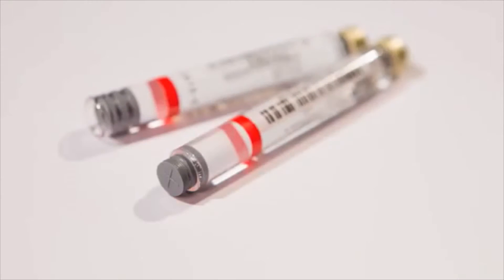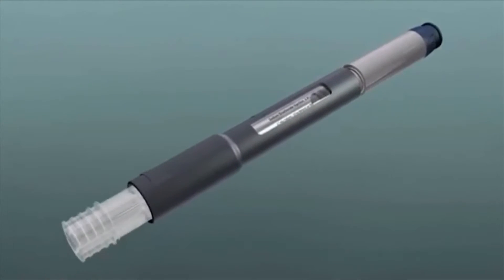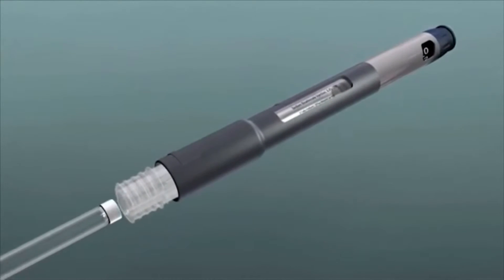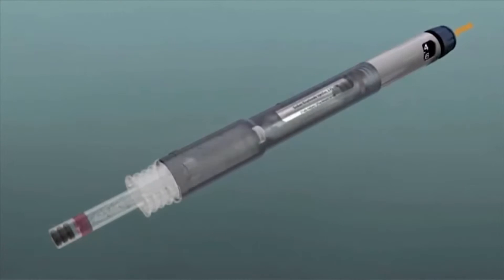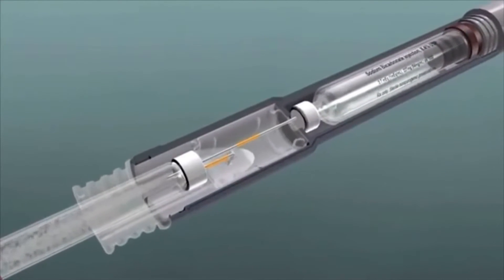If the plunger on the 1.8-milliliter cartridge pushed out during the mixing process, this is an indication that the 1.8-milliliter cartridge was not initially seated all the way into the cartridge connector at the number one position. Normally during mixing, the excess fluid from the 1.8-milliliter cartridge flows into the reservoir in the cartridge connector.